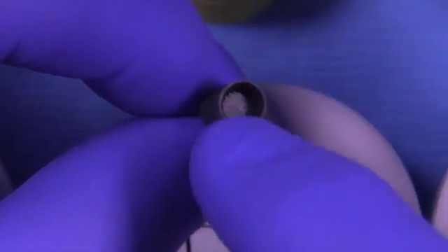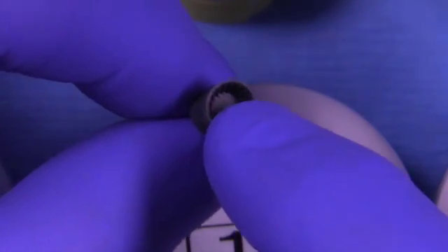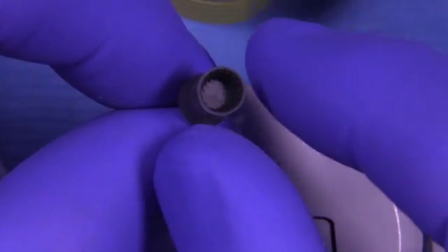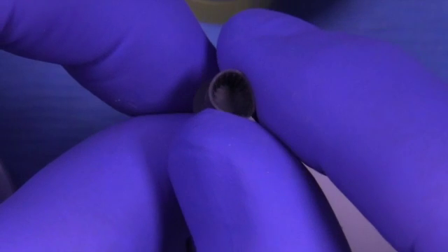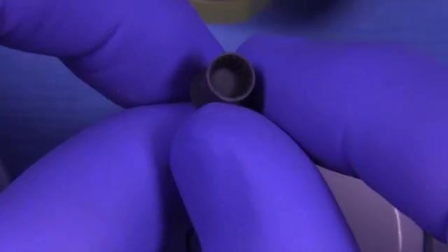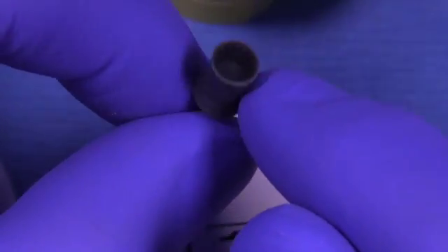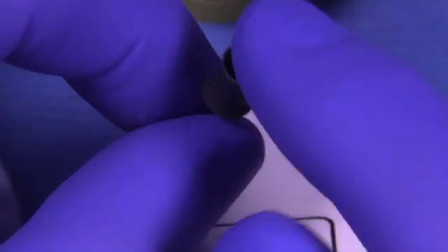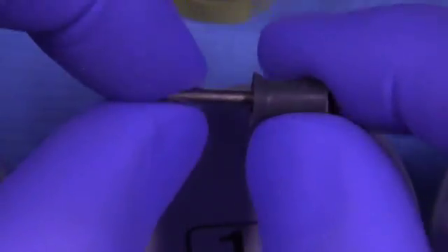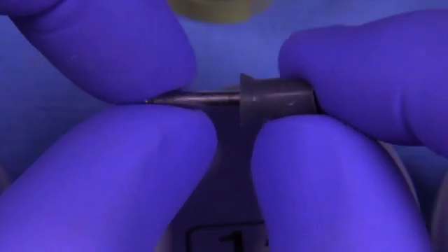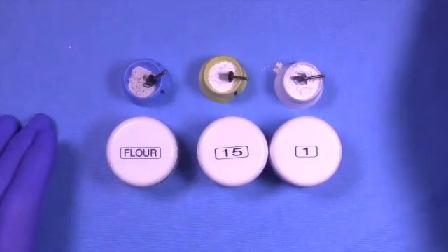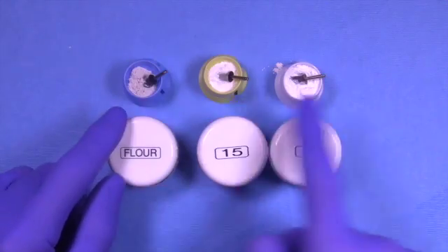You never want to polish castings with a cross in the middle. That cross will throw the powder all over the place, heat up the tooth unnecessarily, and sometimes some of the rubber from the cup will get smeared onto the surface of the casting. We really want to use the ribbed cups and not the webbed ones. These disposable ones from Young's are phenomenal.